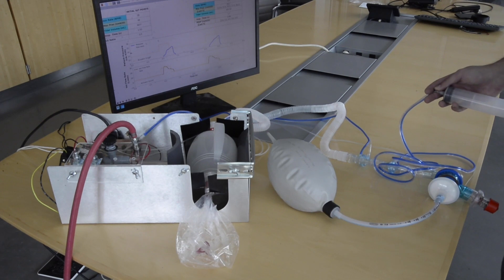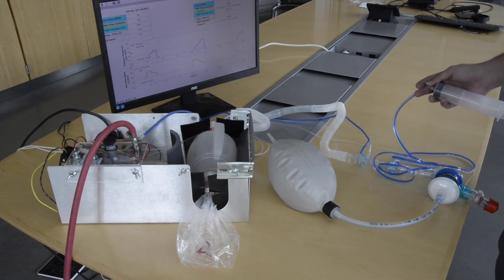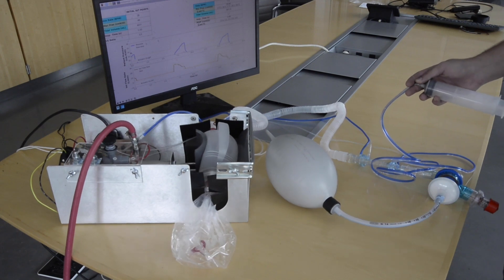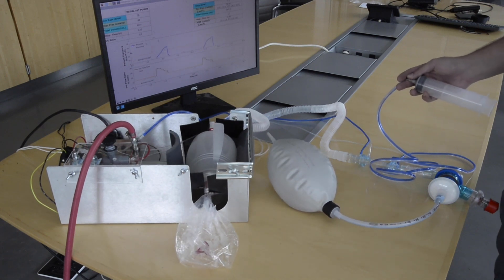The ventilator is also capable of patient assist control, which means that the patient is able to drive the breathing rate based on when they want to breathe.